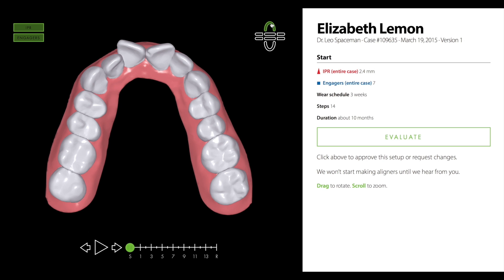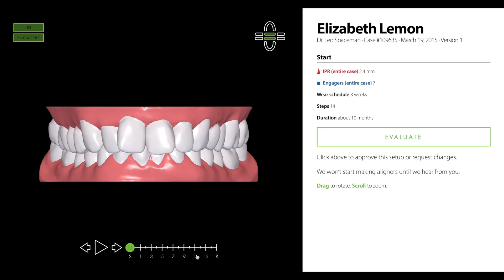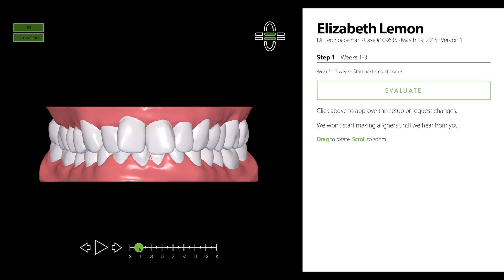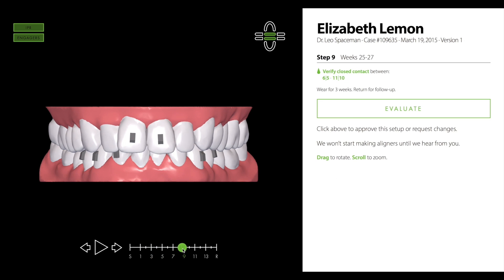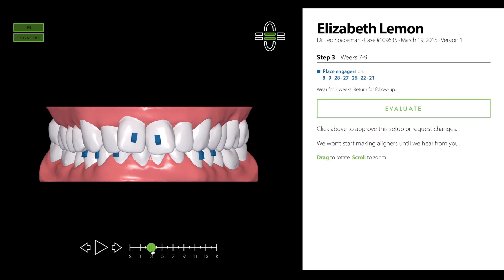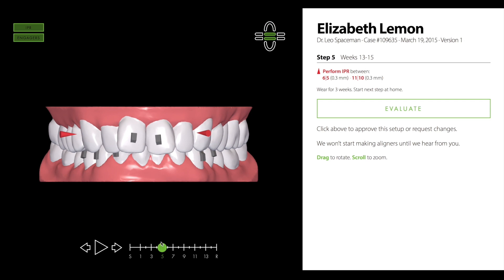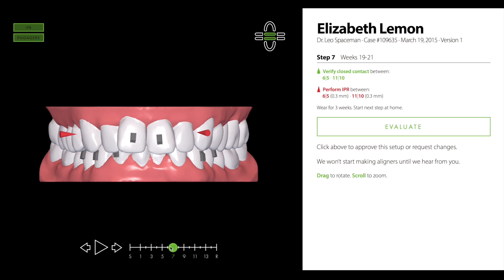Use the occlusal views to confirm that the impressions or intraoral scans accurately captured the shape of the teeth. If you're satisfied with the starting model, carefully review the subsequent steps to verify that the planned tooth movements are safe and effective. Verify that any recommended IPR and engagers are sufficient to achieve your goals. Bear in mind that these models really just represent the shape of the aligners that you'll be given — no one can guarantee what the teeth will do in real life. ClearCorrect's technicians will attempt to follow your instructions as closely as possible.